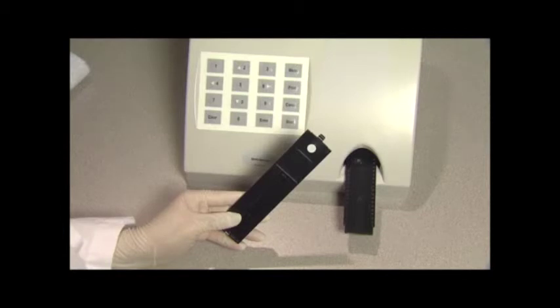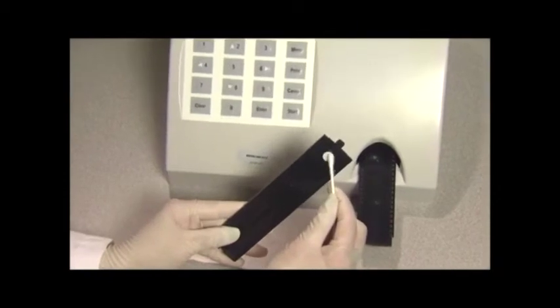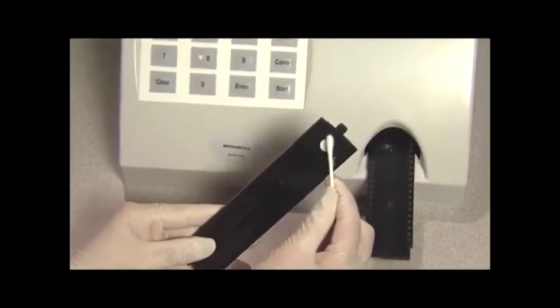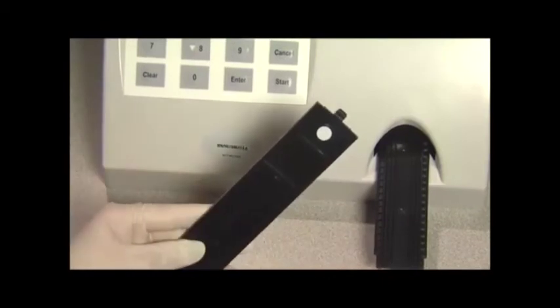Clean the white calibration circle as necessary using a cotton swab or cotton ball with distilled water. Then dry with a clean dry cotton ball.